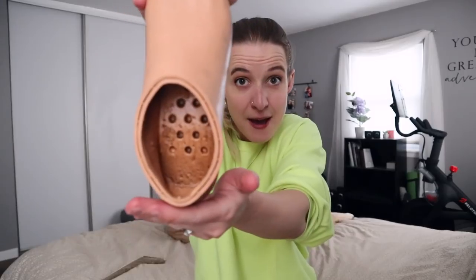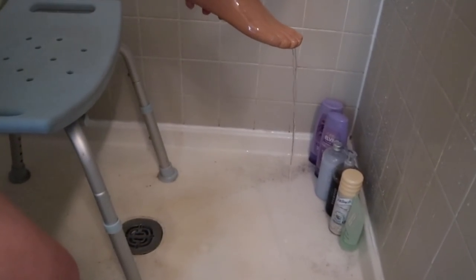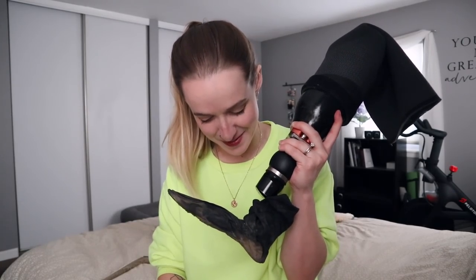I'm going to take you on a brief walkthrough of the different pieces we are looking at here. First of all, we have my foot — the actual foot shell, which is surprisingly light. Absolutely disgustingly dirty inside because I haven't cleaned this out in a year and a half, which was a mistake. Also featured is the giant hole in my toe. As I was rinsing this out, it was just pouring water out the toe, which was quite the visual. This is really just cosmetics, because what actually allows me to walk is down here. What is this weird sock piece? Yes, I know this is disgustingly dirty, and no, I haven't cleaned it yet, and yes, I am going to shortly. I didn't wash this off specifically so I could show you — if you happen to be an amputee, you should really probably take your foot off more often than once every almost two years. It's just caked in dirt.